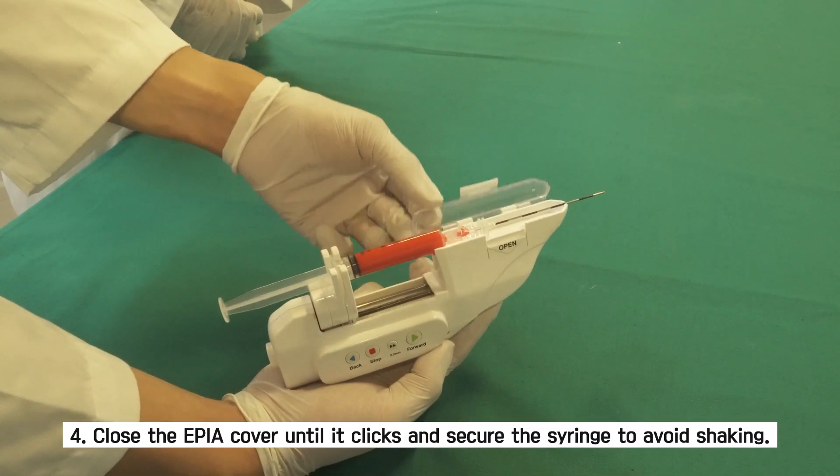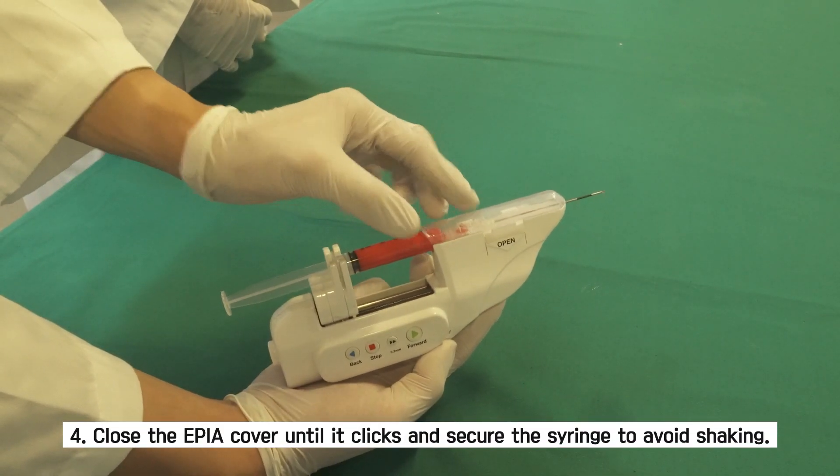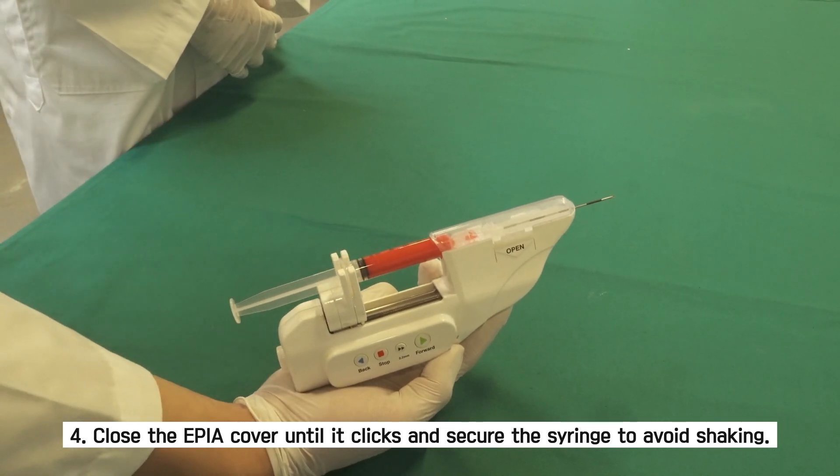Fourth, close the EPIA cover until it clicks and secure the syringe to avoid shaking.